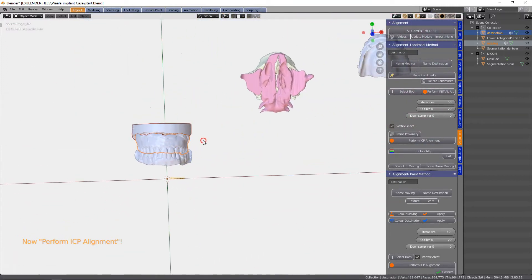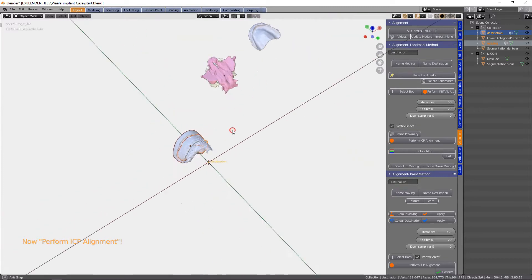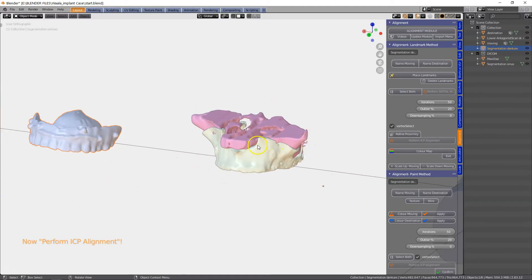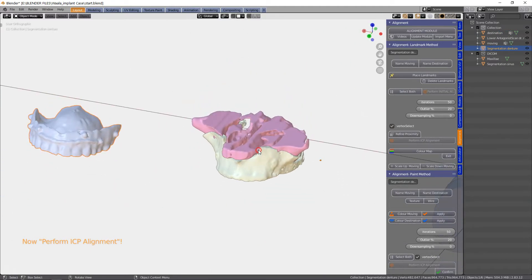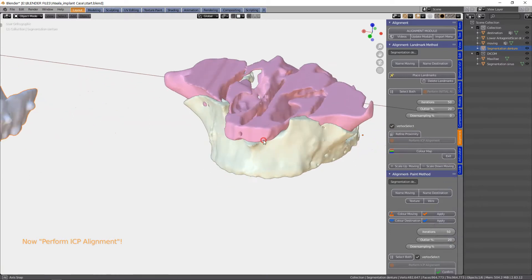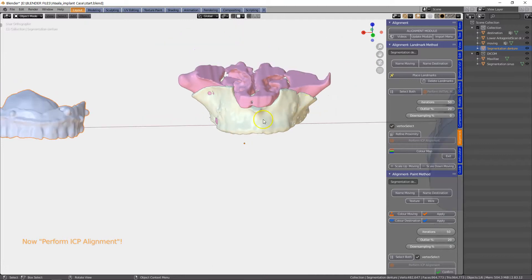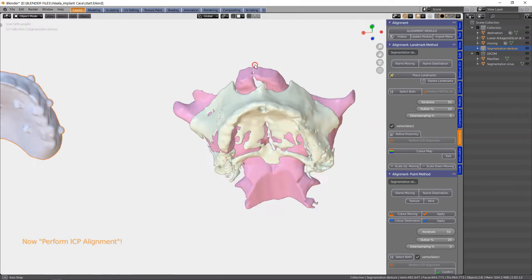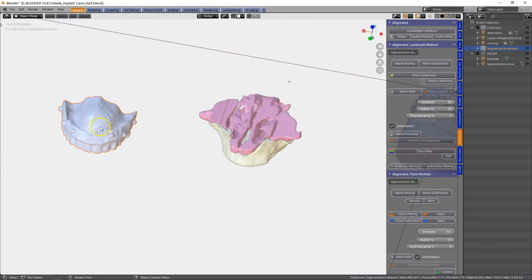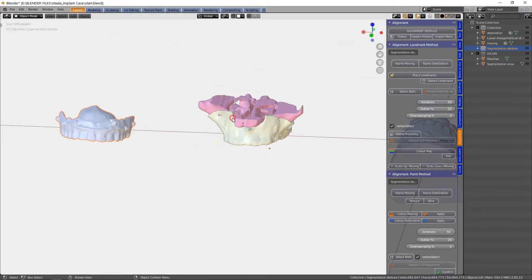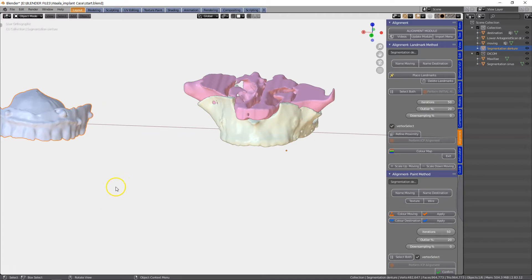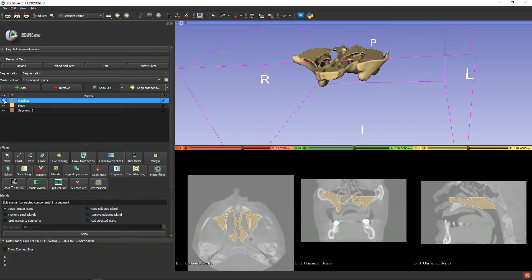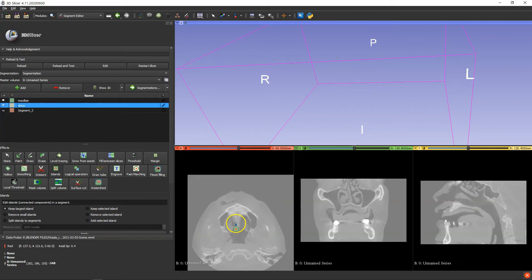Now what we're going to do is we're going to parent all of these, and we need to bring this into alignment with our CBCT scan. It's important that we have the visible markers over here, which we don't have. So I have to go back to the 3D Slicer and make sure I extract these little balls out of the scan — I forgot. But we're going to go back and do that.